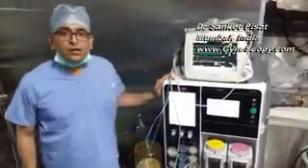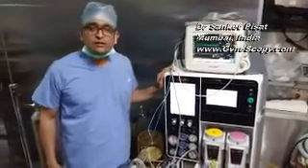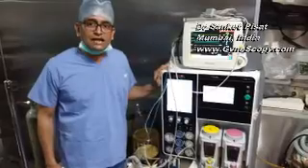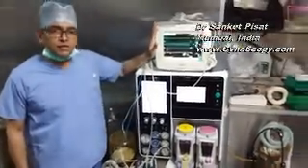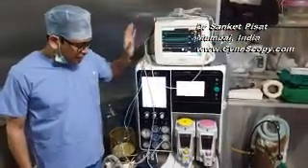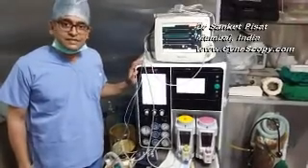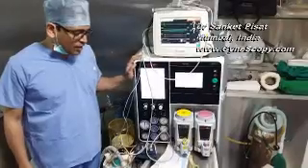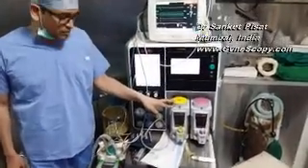Next, during an endoscopic surgery, is the readiness of the anesthesia machine. One should always have a good anesthesia machine, particularly equipped with an NIBP machine. Nowadays, for the gases used, earlier we used to use nitrous oxide, but now sevoflurane and isoflurane are thought to be much safer.